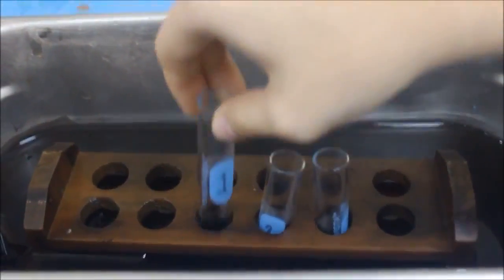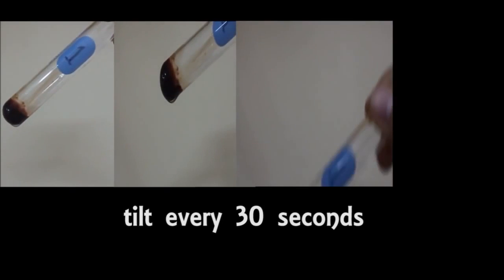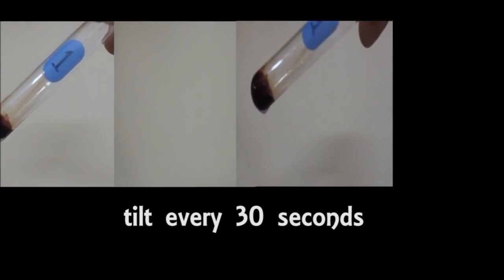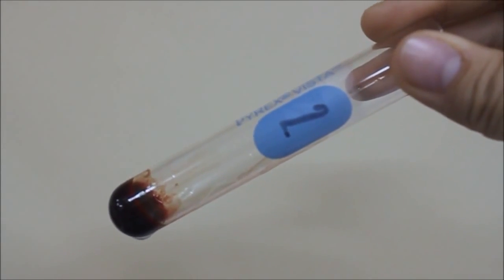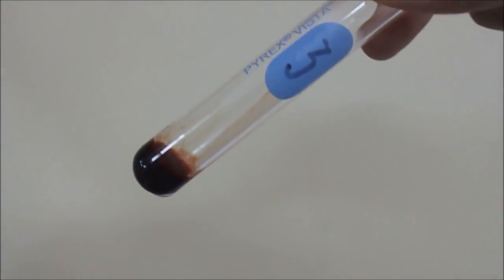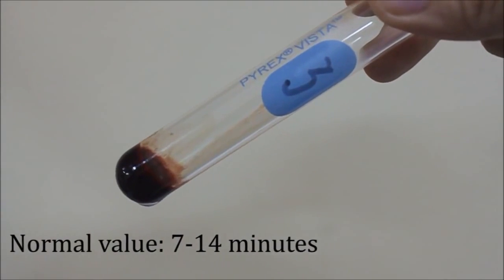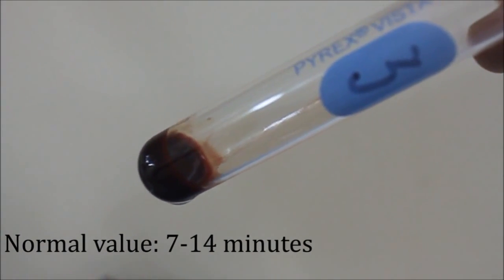At exactly 5 minutes, tilt test tube number 1 gently to a 45-degree angle. Repeat the procedure every 30 seconds until the test tube can be completely inverted without spilling the contents. Do the same in test tube number 2, then test tube number 3. The coagulation time of test tube number 3 is the reported result. The normal value for the Lee and White whole blood method is 7 to 14 minutes.